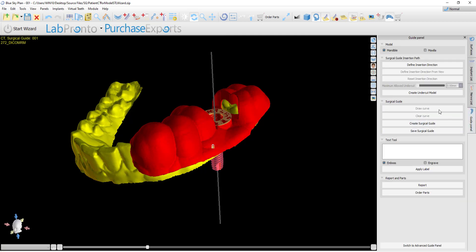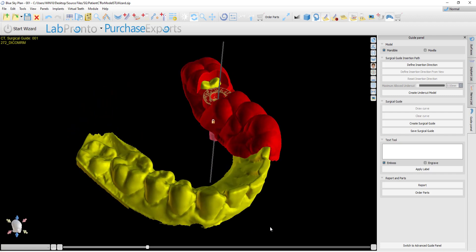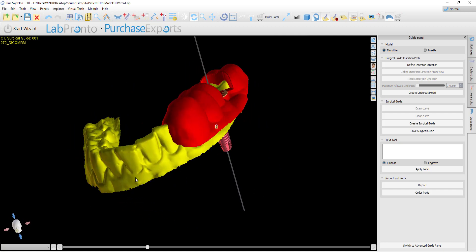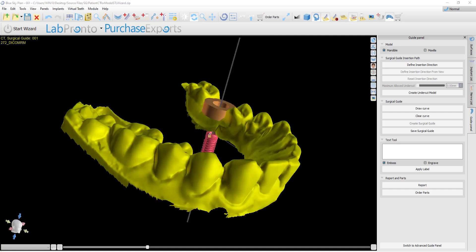Simply click on Draw Curve. The software will generate the model with the undercuts removed. You might have that message come up if it's your first time, if you haven't chosen 'Do not show again.' But no worries — the model shows up on the screen automatically. You simply draw the curve and generate the surgical guide.